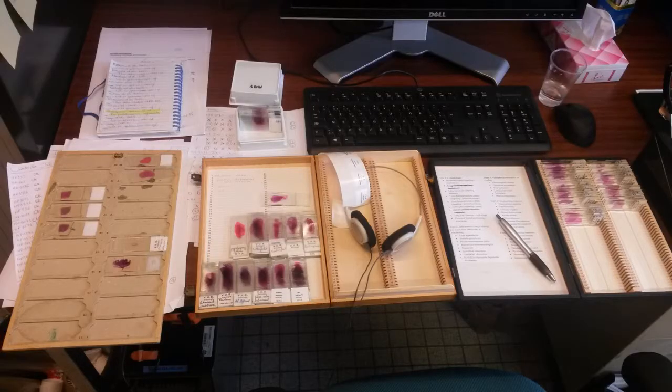Many instructors around the world have become used to preparing their class sessions when and where they want it. You can easily prepare a midterm exam at a cafe during the weekend using a laptop and a Wi-Fi connection. But because this traditional form of education requires the handling of physical slides, instructors can't prepare their classes at home during off hours. They need to come into the office and prepare within a specific time frame. Even more critical, the same is true for the student, who can typically only examine and study the material during the scheduled lab sessions. Making material available to students after hours is difficult.